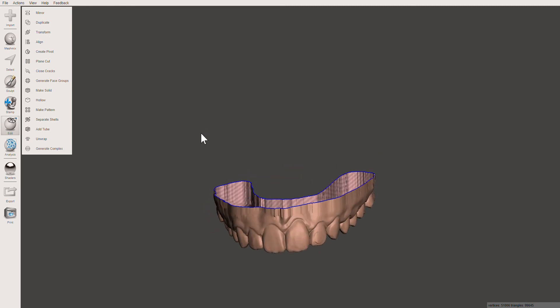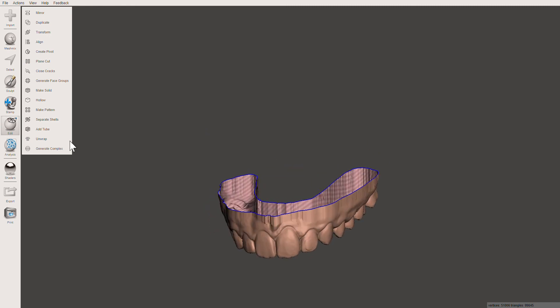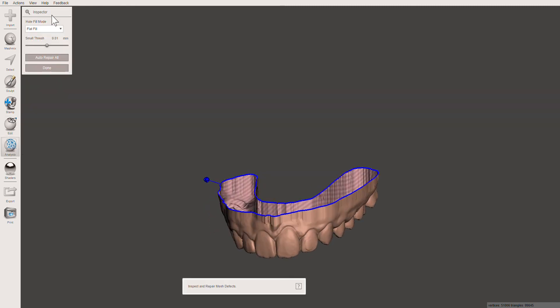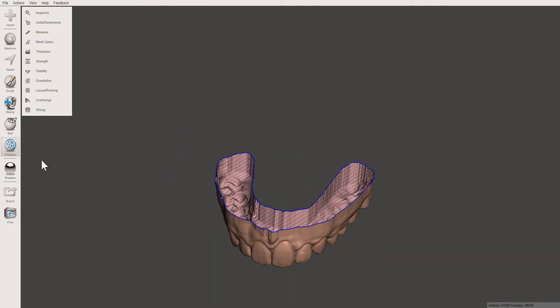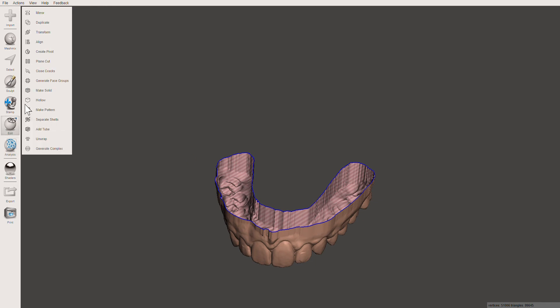The last thing is to check for holes once again — looks good, just one boundary. Now we're going to make it a solid model: go into Edit, Make Solid. It should say 'filling hole: 0 1' — you only want one hole to fill. If you've been doing your analysis and Inspector properly you should only have one hole to fill. This can take a little time.